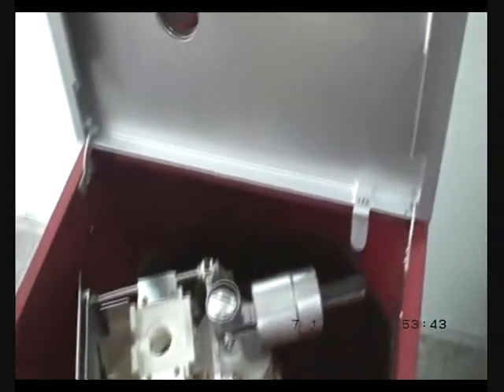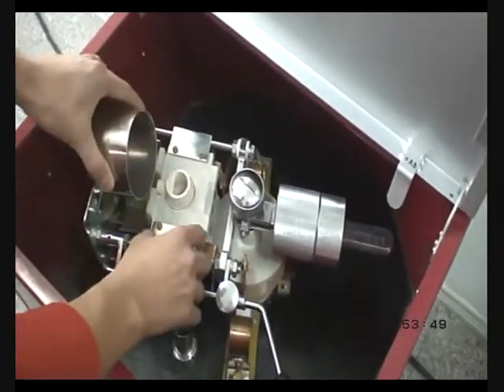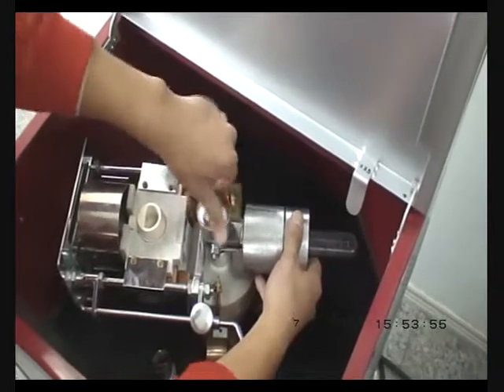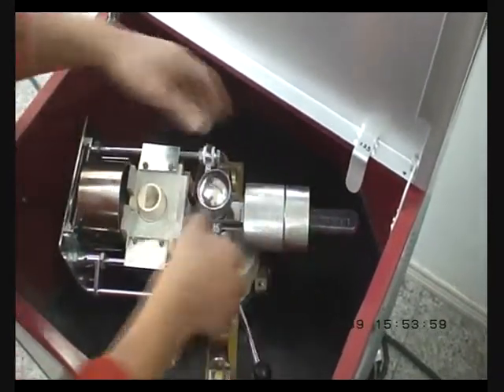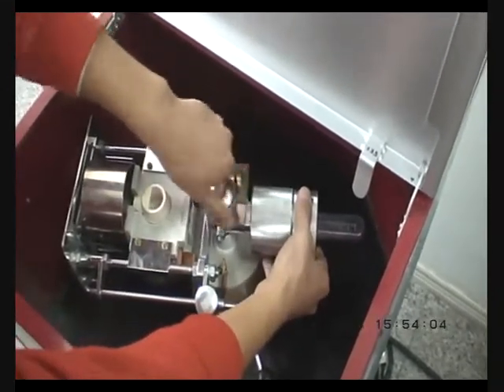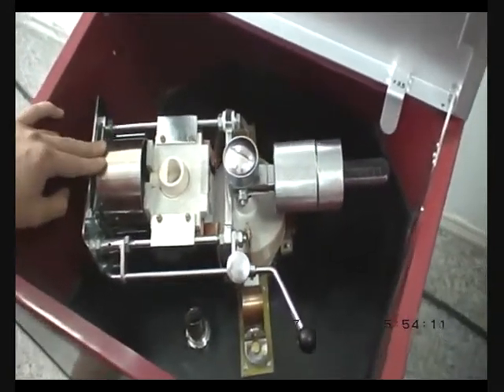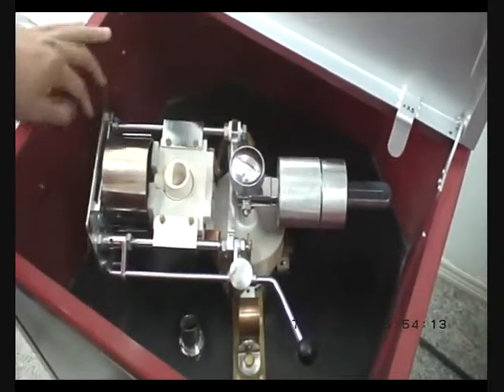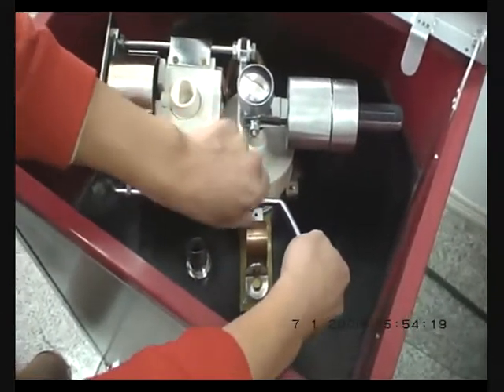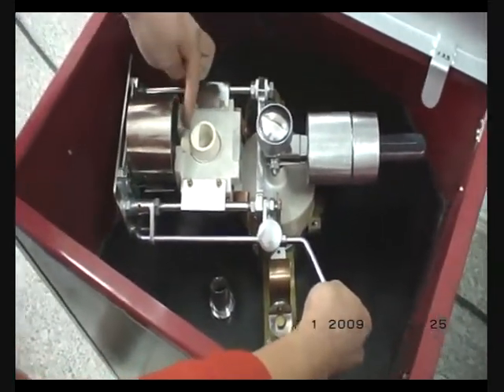Open the lid. Now put in the crucible and the casting ring, and adjust the balance. There are three sizes of the casting ring: big, medium, and small. So you have to adjust the weight before you put in different casting rings. This switch is to lift the casting ring. Make sure the center of the casting ring is pointed to the crucible.